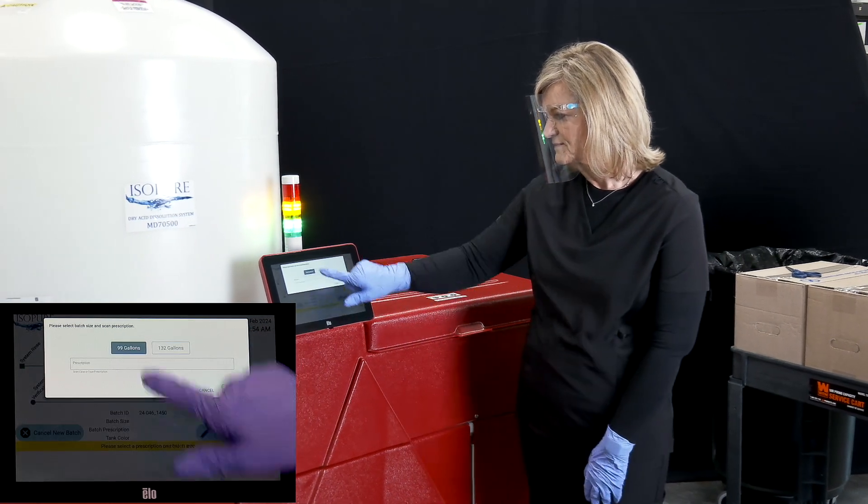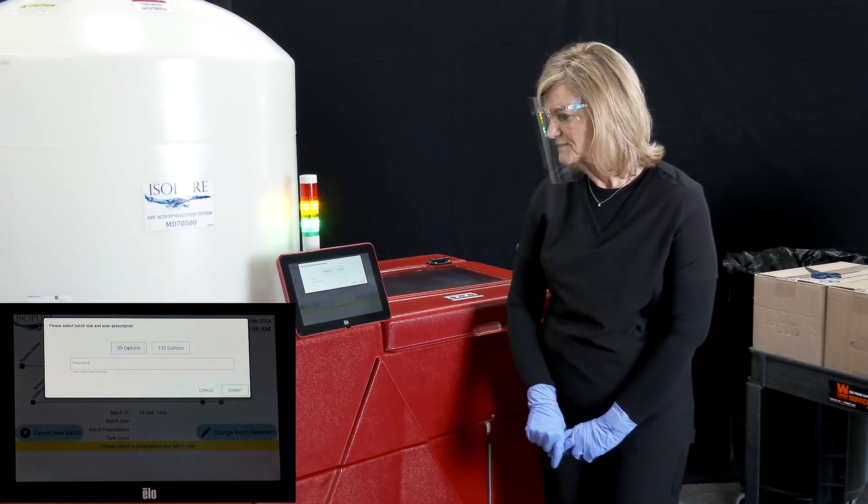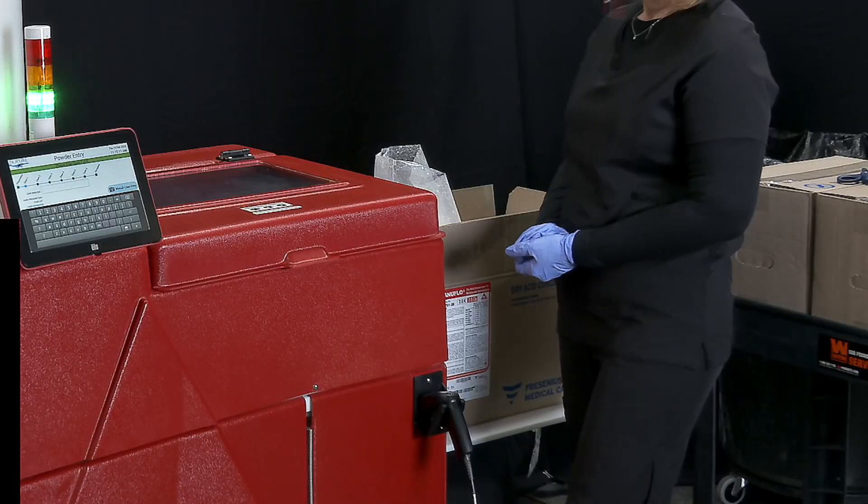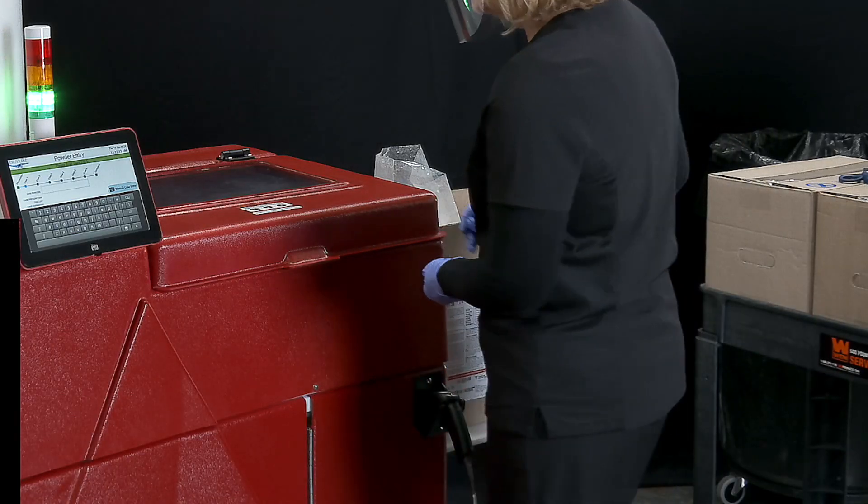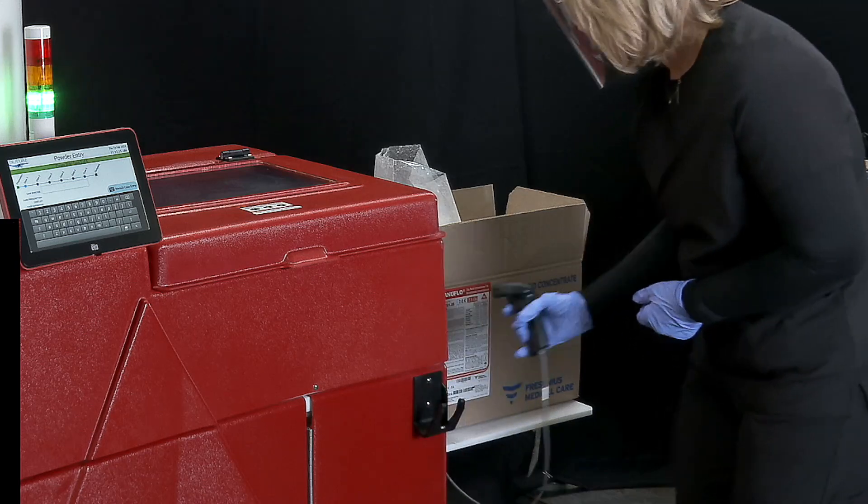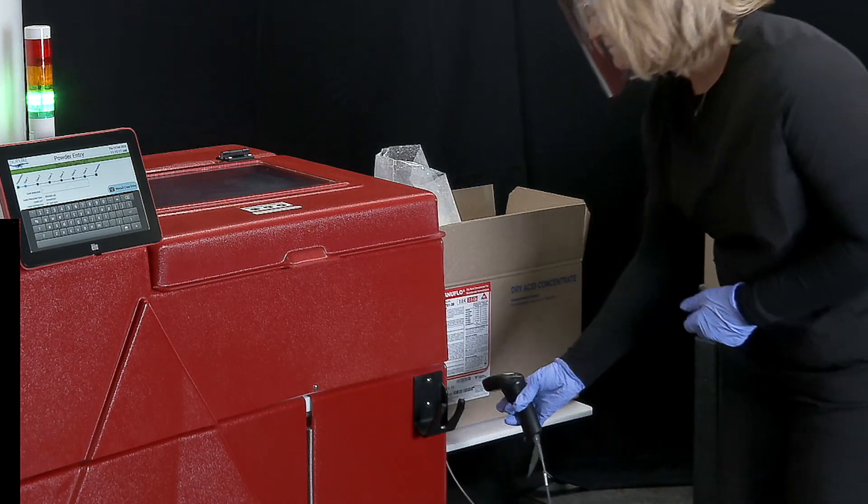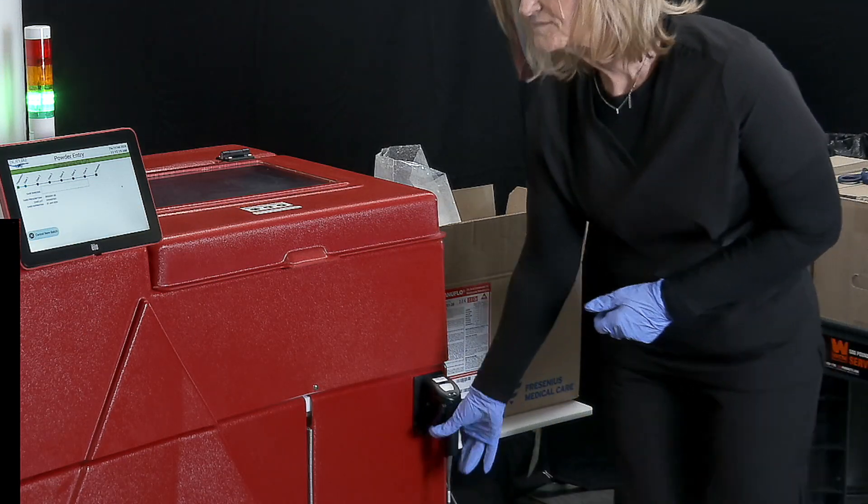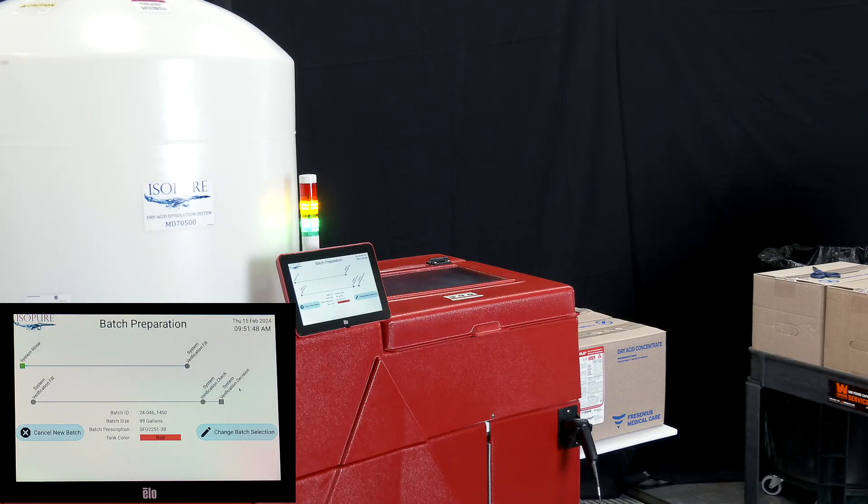Next, select the desired prescription and batch size by scanning the UDI code from the case of dry acid concentrate you intend to use. The Acumix will calculate the number of cases needed based on the prescription and batch size.